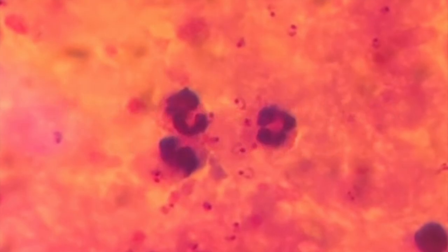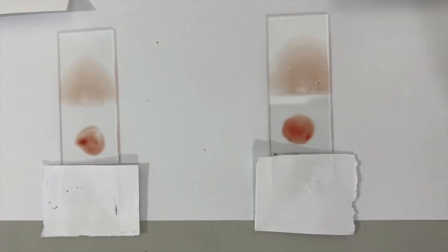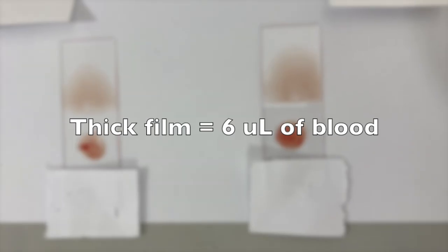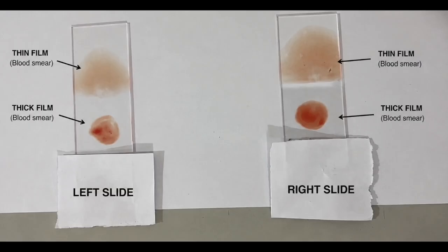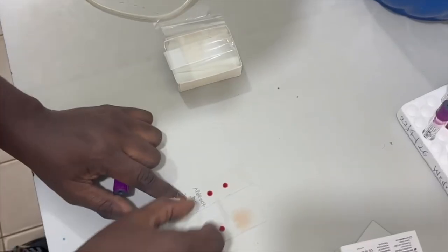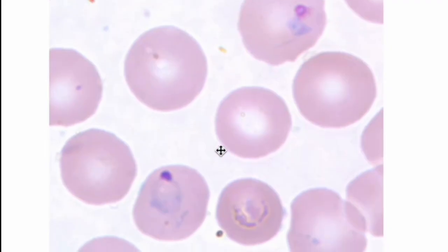The red cells in a thick film are largely lysed during staining, and that's because you don't fix them before you stain. So the parasites are concentrated in a relatively small area. You use 6 microliters to prepare it. That makes a thick film considerably more sensitive for detecting malaria parasites, particularly when parasite densities are low. The World Health Organization recommends examination of both thick and thin films for malaria microscopy.